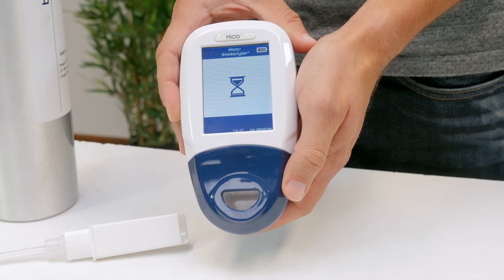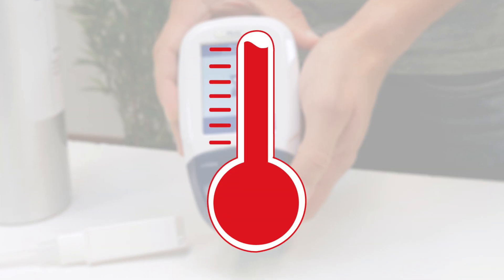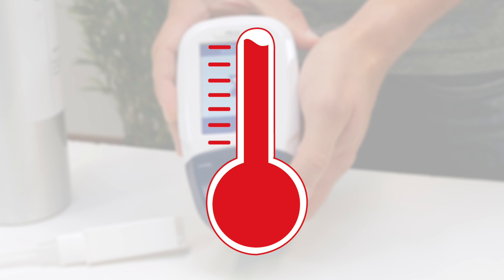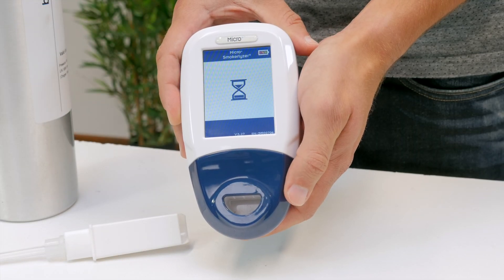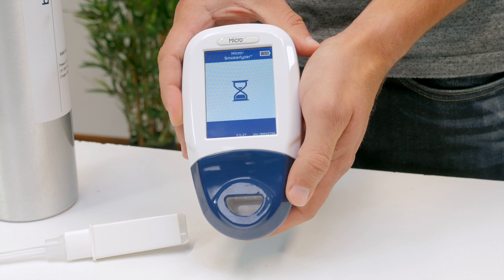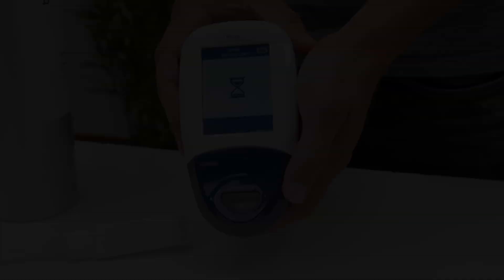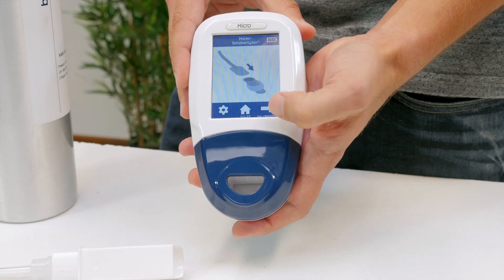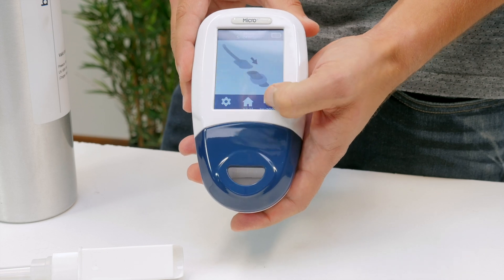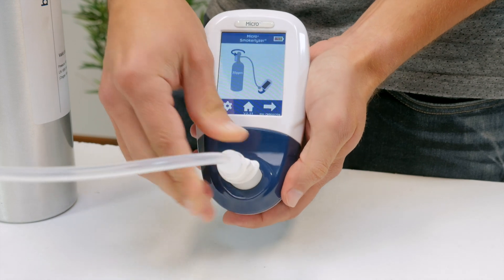If the temperature of the monitor is too high to calibrate, the red thermometer will be shown — try again later once the unit has cooled down. Once this has been successfully carried out, the device will perform a zero; do not apply gas at this stage. The first step of the calibration process will be shown on screen — follow the on-screen instructions to finish the calibration process.